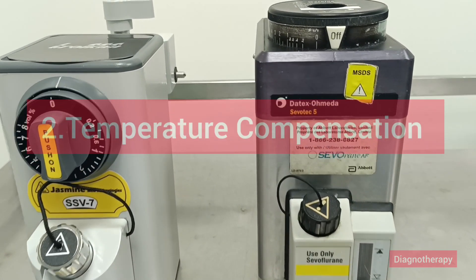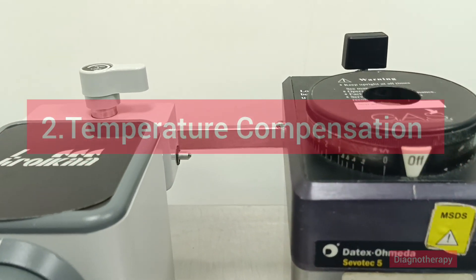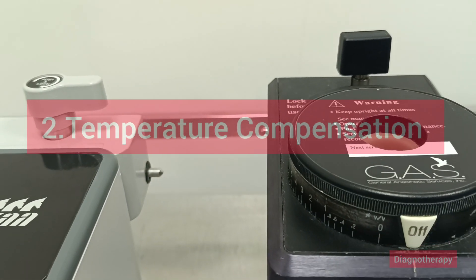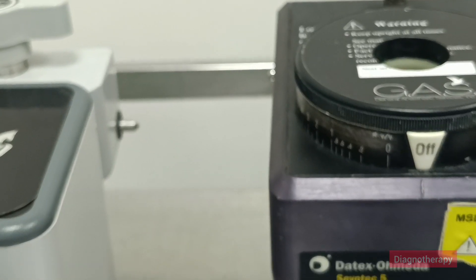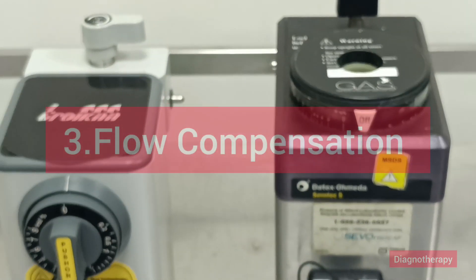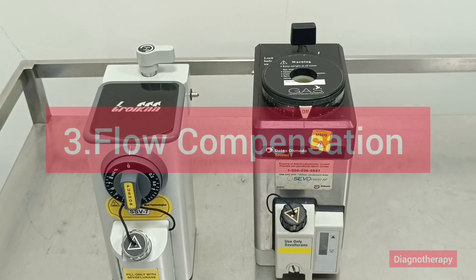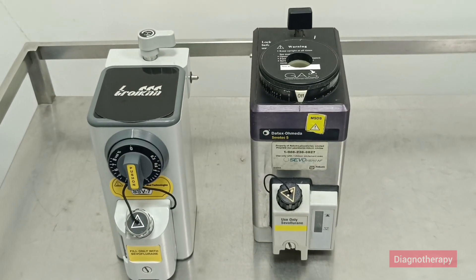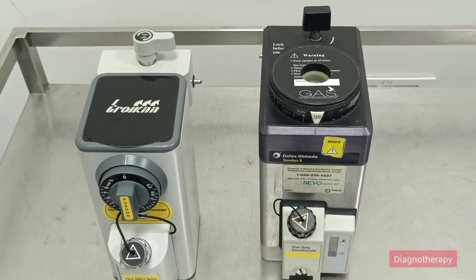Second, temperature compensation. Many vaporizers have built-in mechanisms to adjust for temperature changes, as temperature affects the rate at which liquid anesthetic vaporizes. Third, flow compensation. Vaporizers control the flow rate of the gas to maintain a stable and controlled supply, even with variations in pressure within the anesthesia machine.